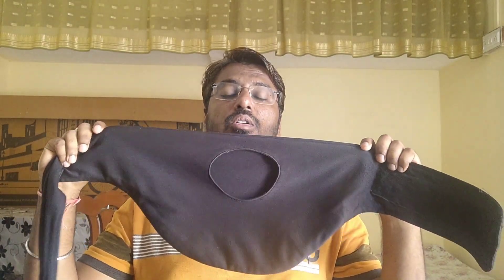Whichever language you feel comfortable with, you can watch my content. In my past videos I have talked about the ostomy belt, which is a very useful and handy device for ostomy patients. In this video I want to share about the horizontal ostomy belt. Yes, there are two ostomy belts — vertical ostomy belts and horizontal ostomy belts.